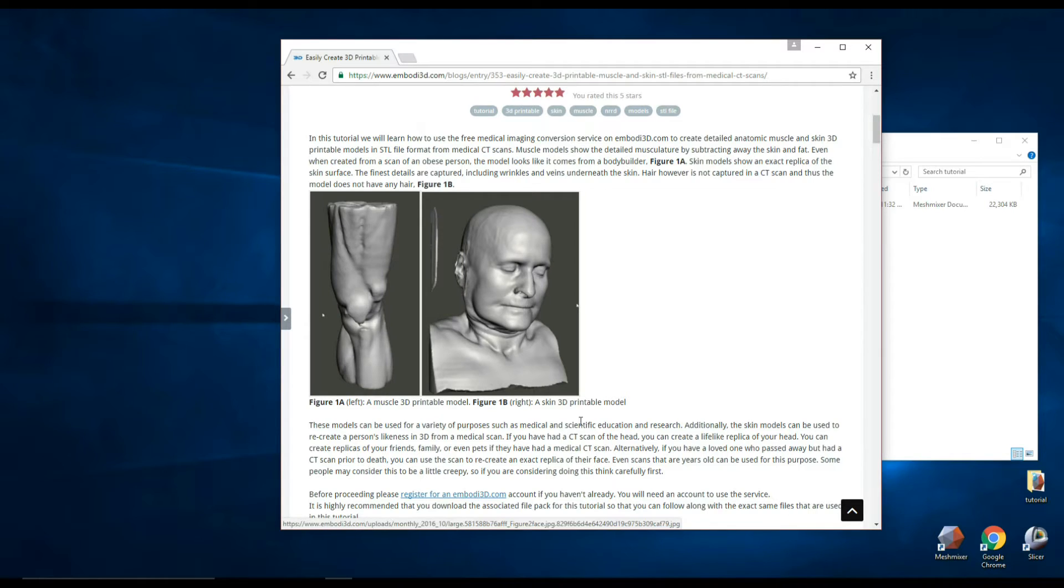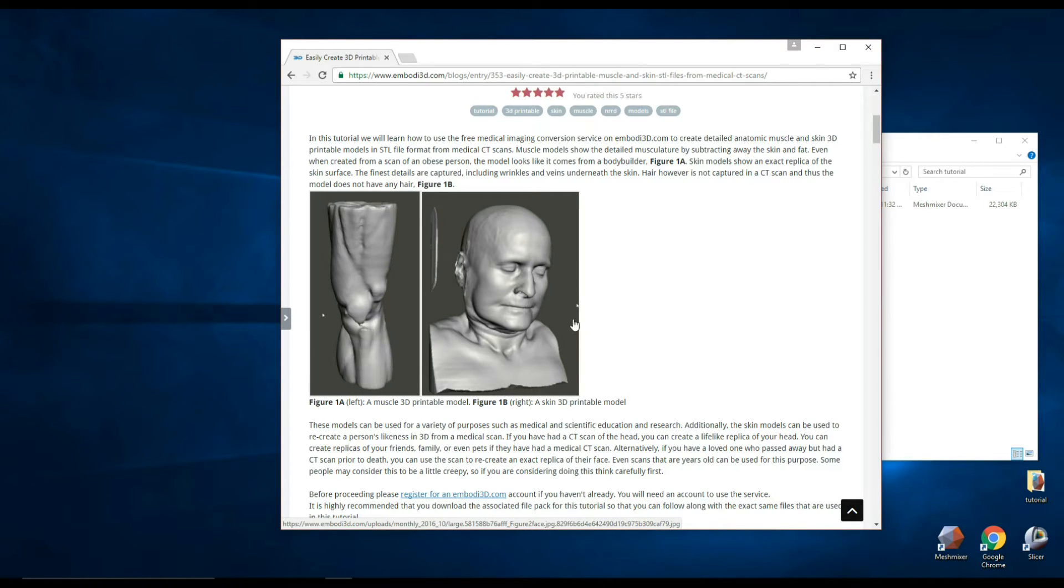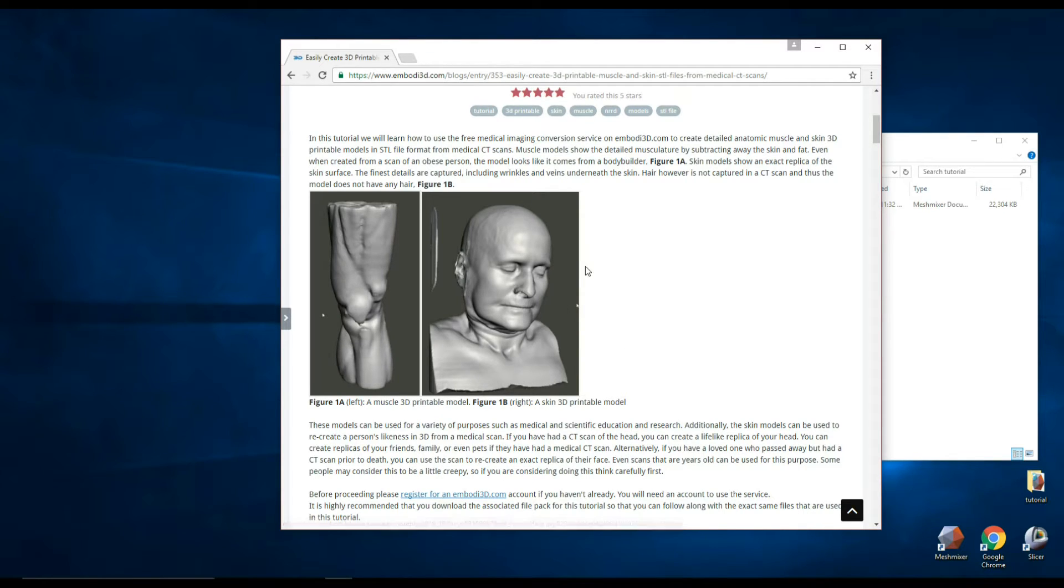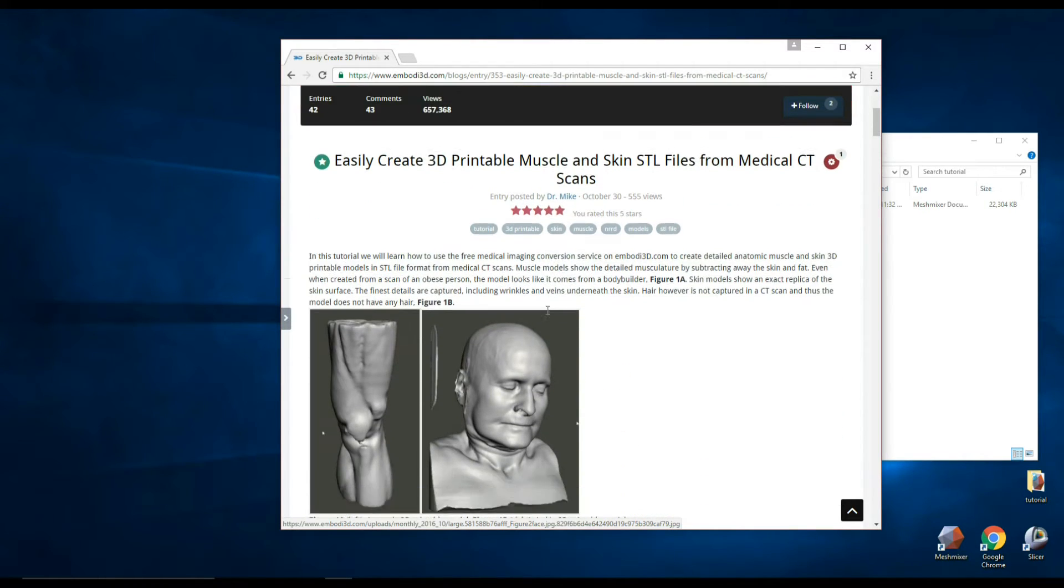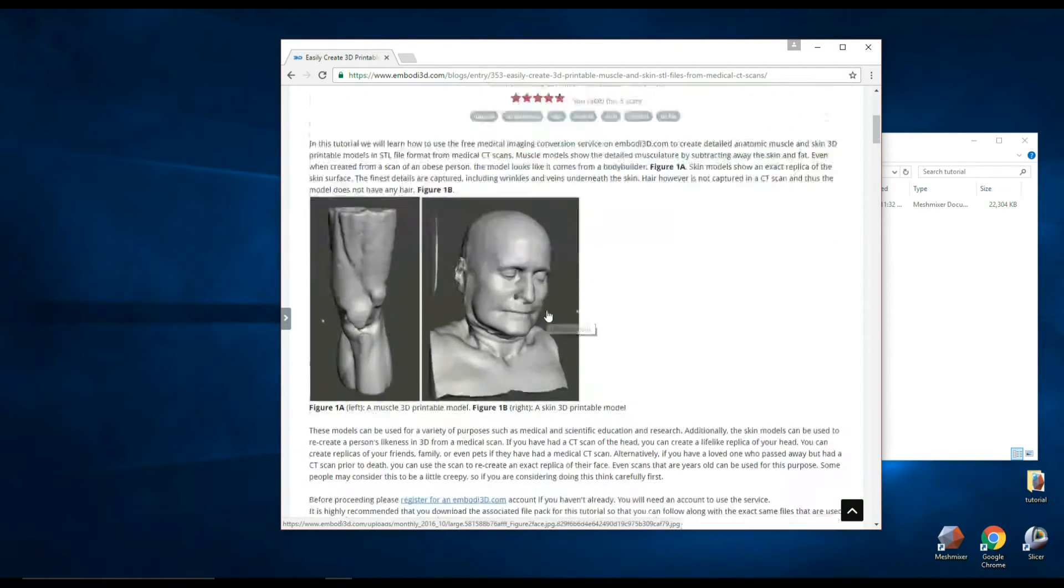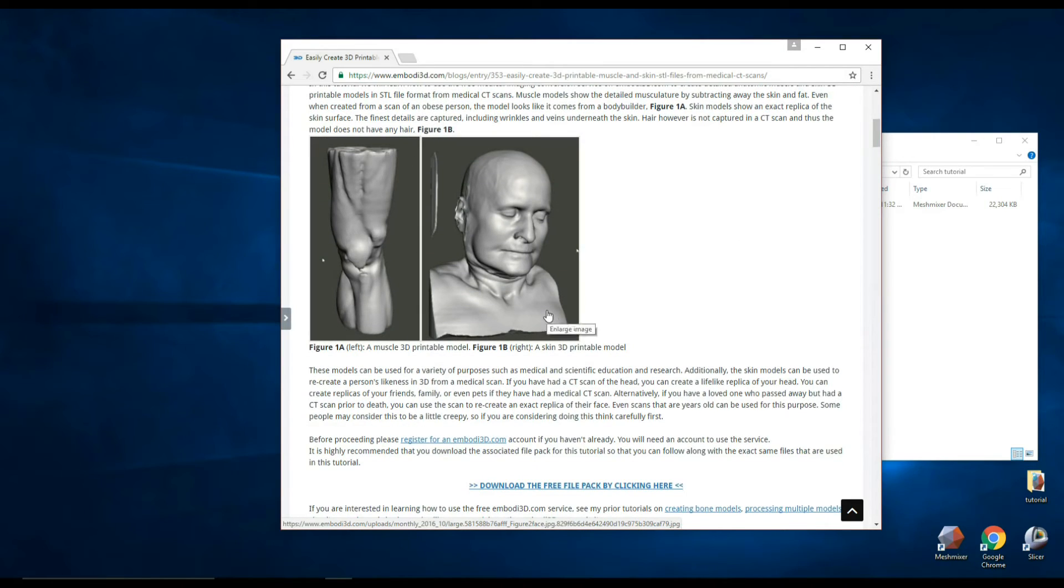These are life-size replicas of a person's face or muscle, and if you want to 3D print them, this is going to take up a lot of material. But if you print the model as a hollow shell, it will save a lot of expense in terms of the material costs.